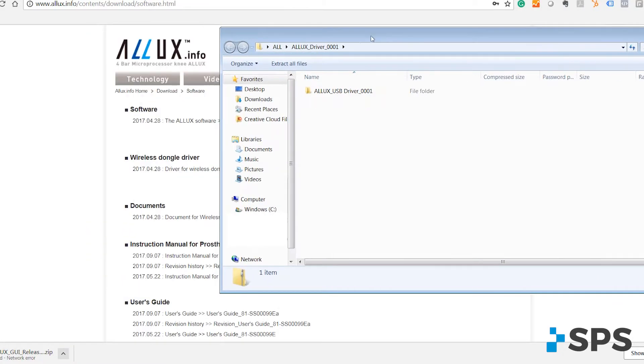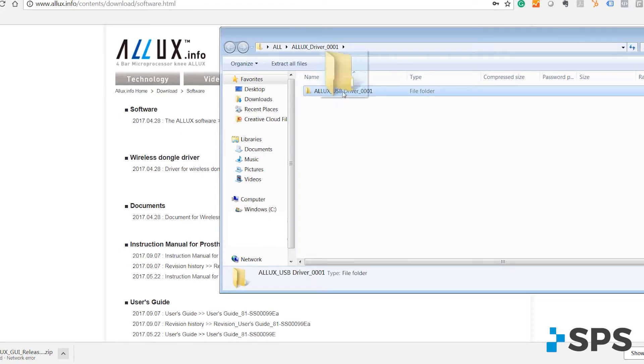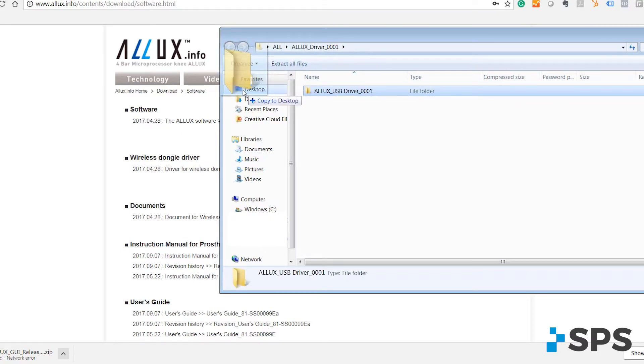After it's downloaded, we suggest that you transfer those files completely over to your desktop and unzip them from your desktop screen.